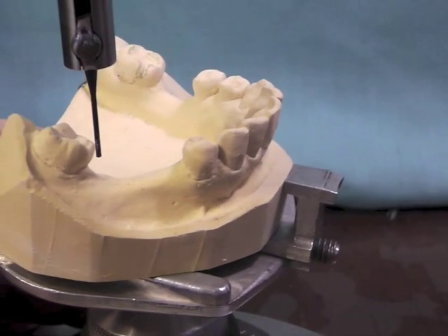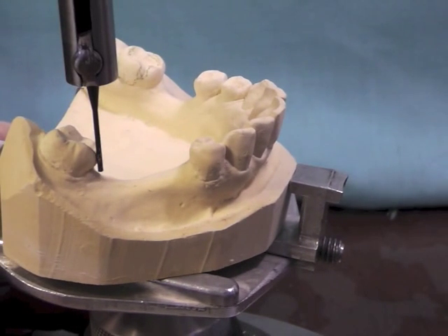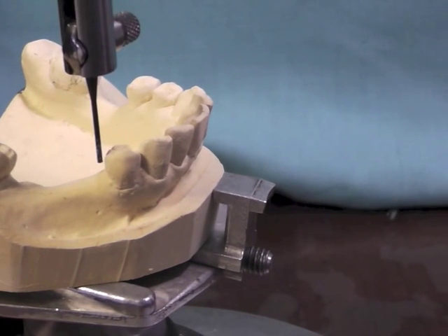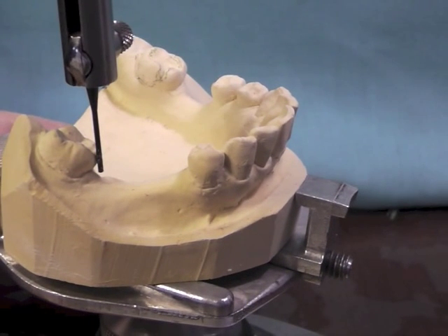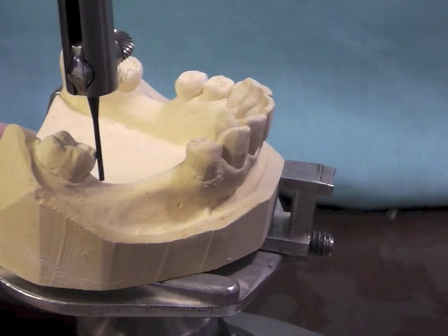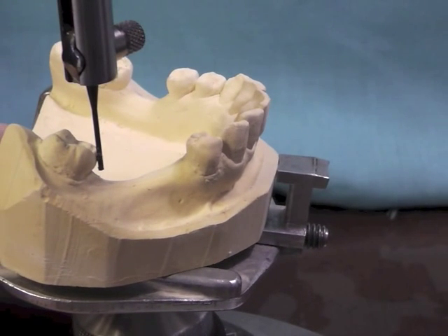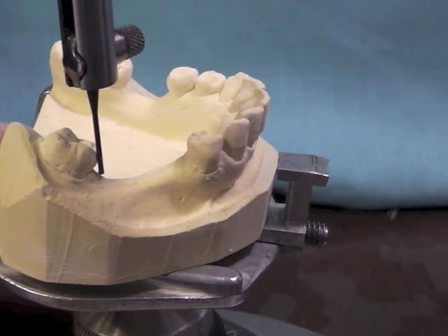In looking at my guide planes, I would like to create two rather parallel surfaces, and I would like that guide plane to be at least two to three millimeters from the marginal ridge to the bottom. When I look at this particular cast, I have a discrepancy in that this posterior tooth leans severely to the mesial, especially on that lingual cusp, even though my guide plane is going to be more centered between the buccal and the lingual cusp.